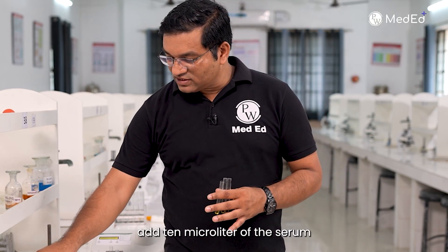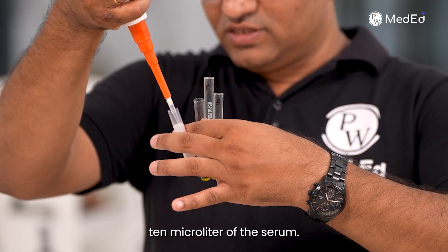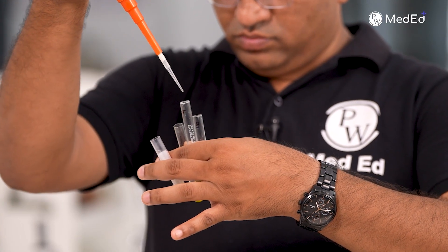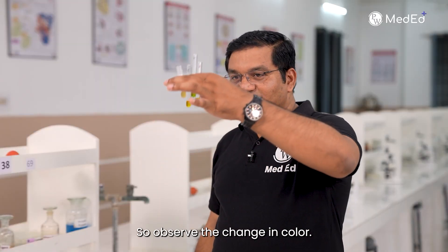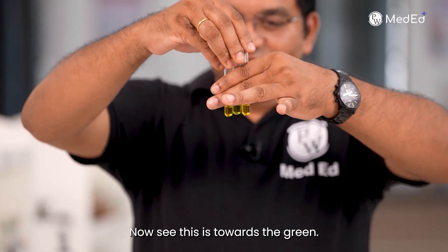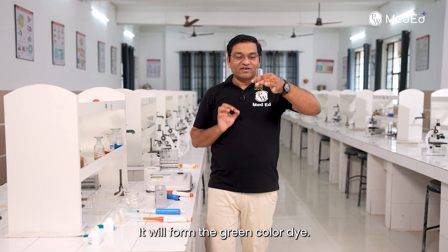Add 10 microlitres of the serum in the test tube. Observe the change in colour — the serum is added to the test tube and you will note the change in colour. See, this is towards the green. It forms a green dye — albumin and BCG combination will form the green colour dye.